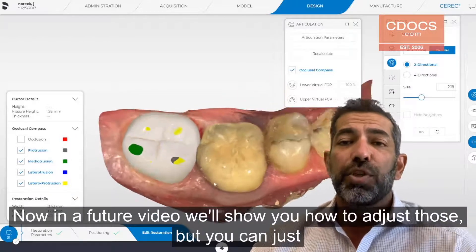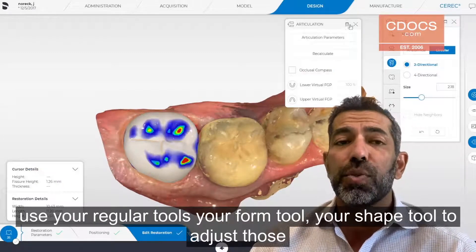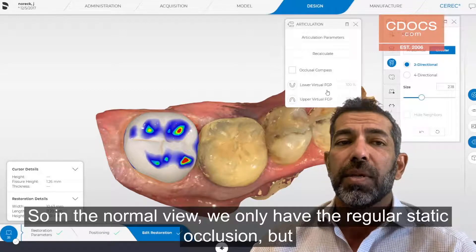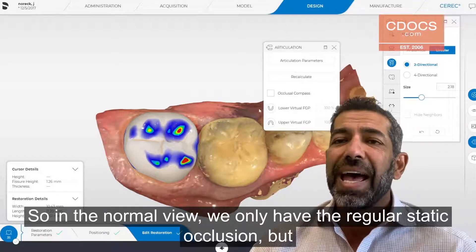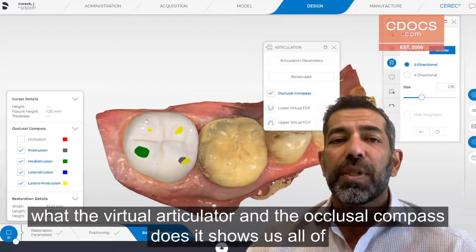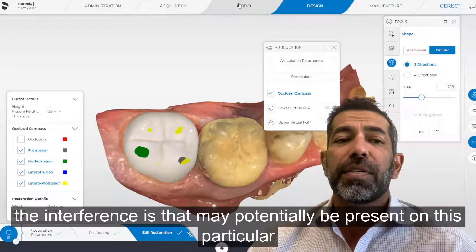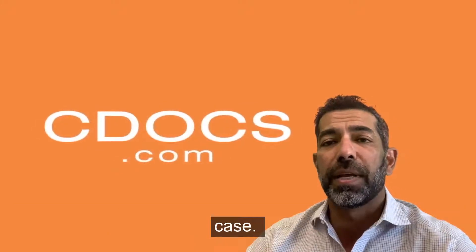In a future video, we'll show you how to adjust those, but you can just use your regular tools — your form tool and your shape tool — to adjust those high spots. In the normal view, we only have the regular static occlusion. But what the virtual articulator and the occlusal compass does is show us all of the interferences that may potentially be present on this particular case.